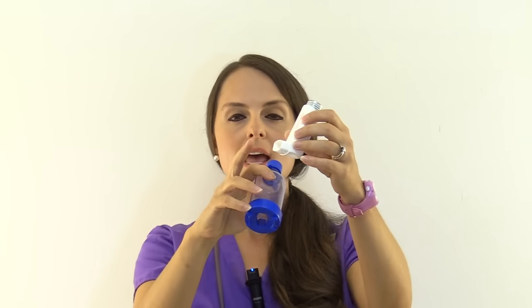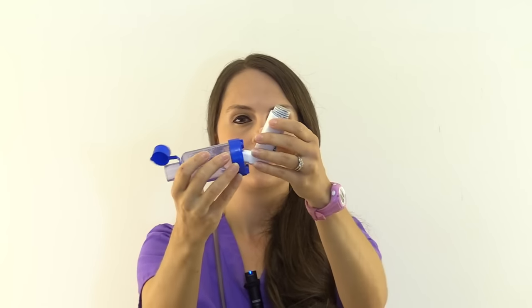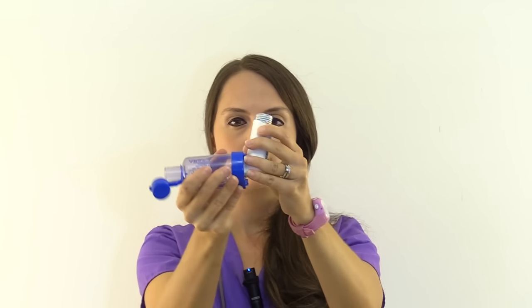After priming, connect the inhaler to the spacer. Make sure the cap of the inhaler is off, then remove the cap from the spacer mouthpiece — that's where the patient will put their mouth to inhale. Connect the mouthpiece of the inhaler into the spacer opening and it will stay on.